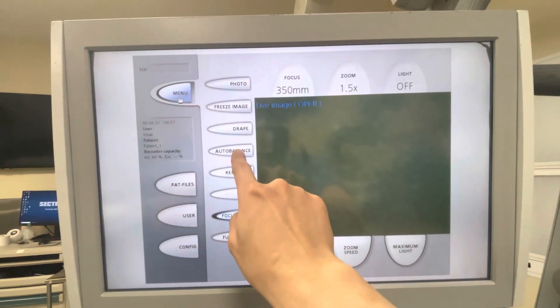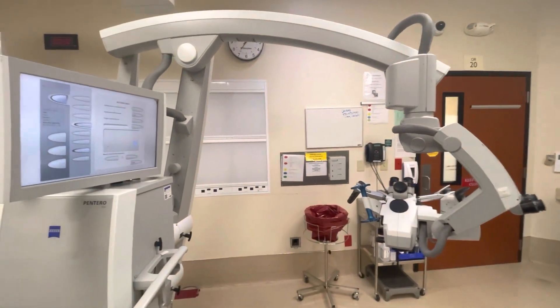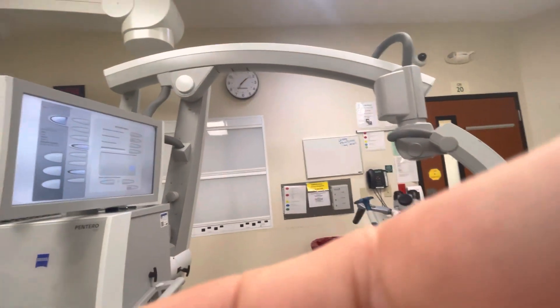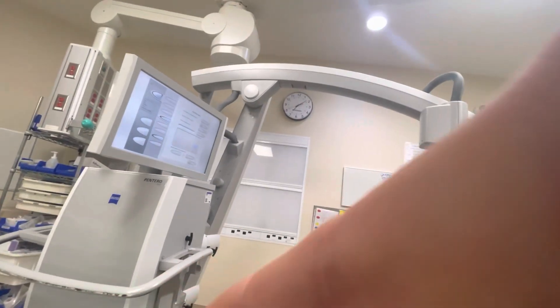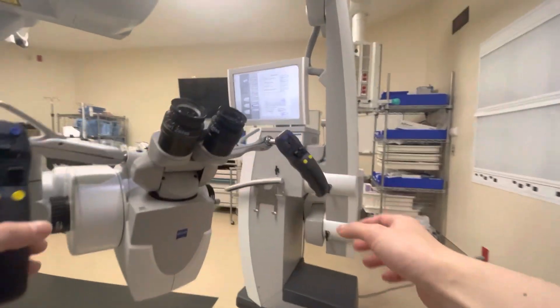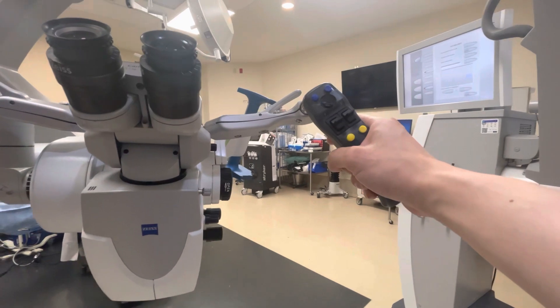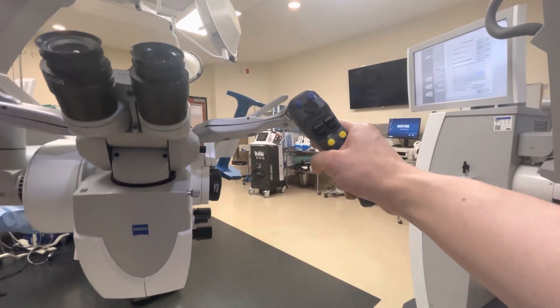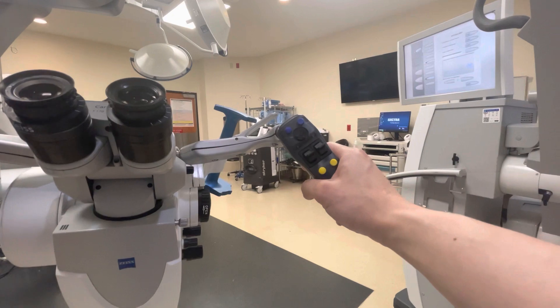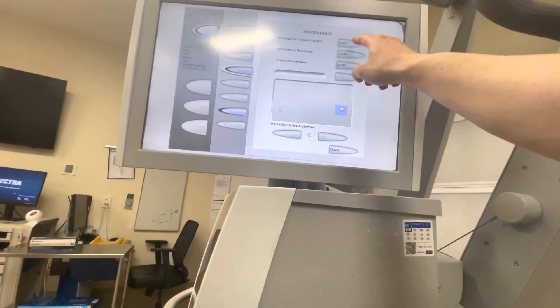Go back to the menu and press auto-balance. This is probably the most interactive part — you're going to move that white dot into the blue square. To do that, go behind the arms, press the buttons on the back with your index finger, and move it into that square. Once it's right in the middle, go back to the monitor and press 'Complete Auto-Balance System,' which is at the very top. And that's it.